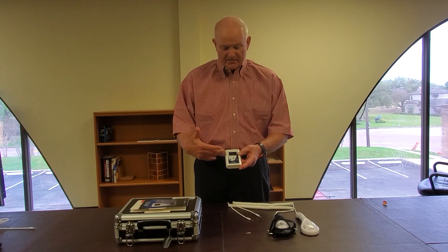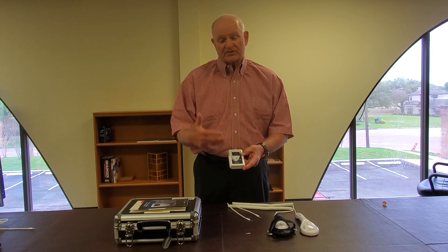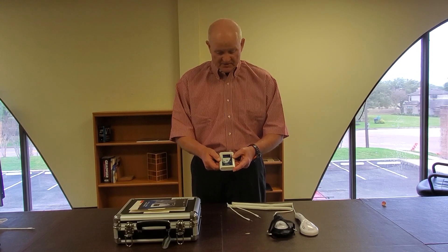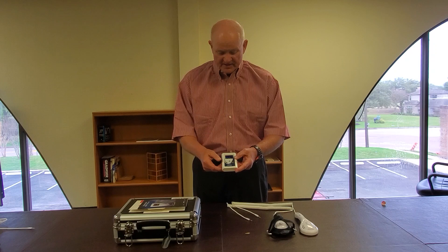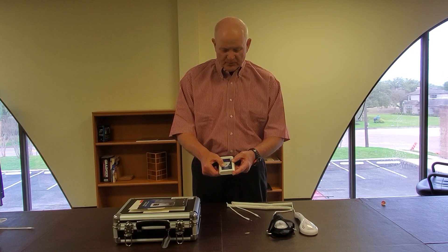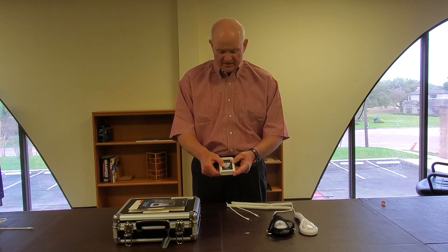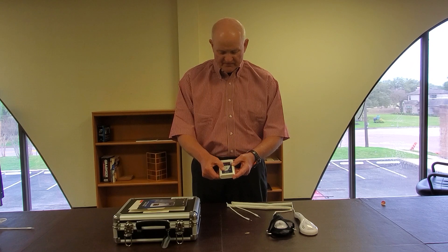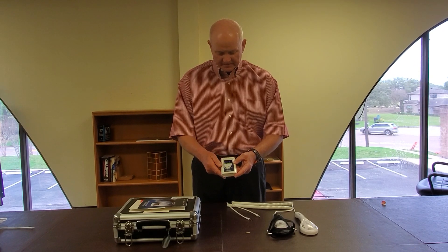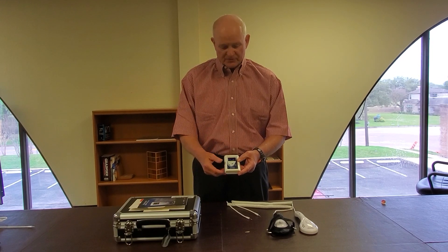Our time is given by cycles. So 10 minutes is 18 cycles, and we always start you out at one cycle. What I'm going to do is dial it up to 18 cycles — going 2, 3, 4, 5, 6, 7, 8, 9, 10, 11, 12, 13, 14, 15, 16, 17, 18. So we're now at 18 cycles, or 10 minutes worth of treatment time.